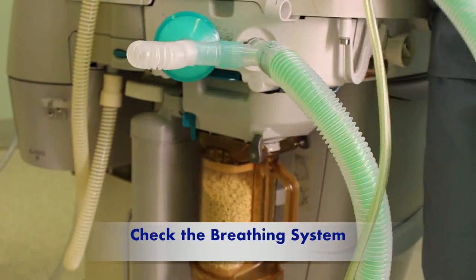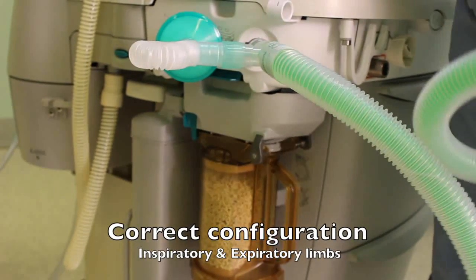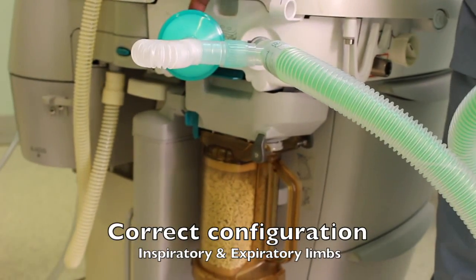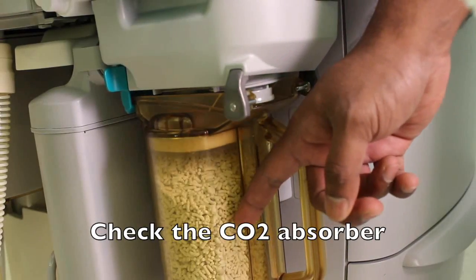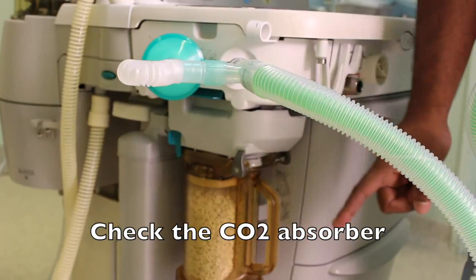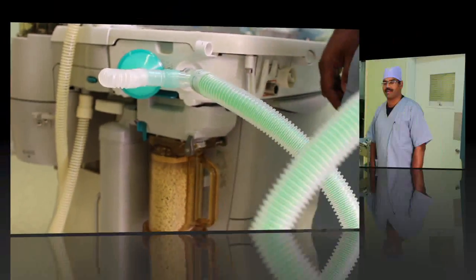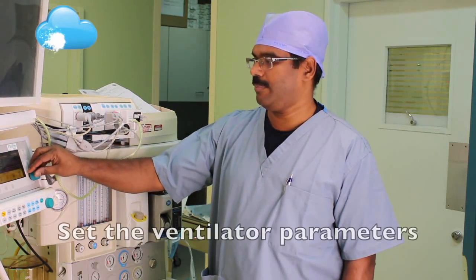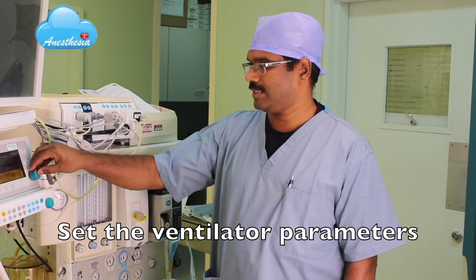Check the breathing system for correct configuration — the inspiratory limb and the expiratory limb. Check the soda lime canister to see whether it is exhausted. Next, set the ventilator parameters depending on the first case of the day, and change any appropriate settings.